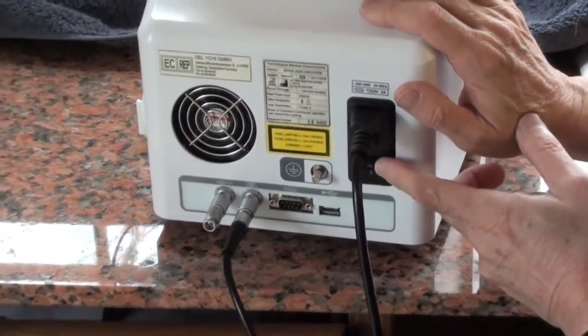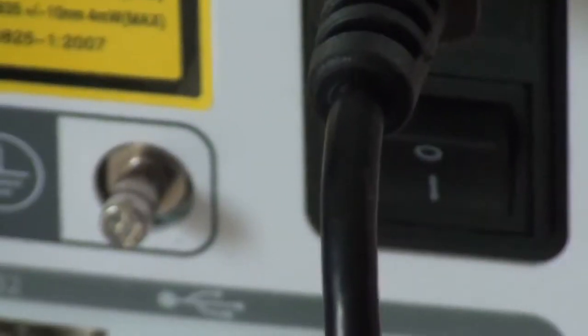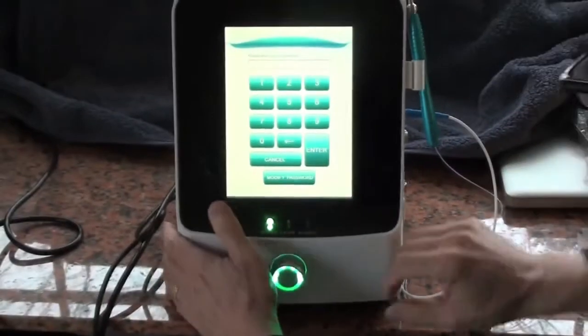That's how you turn it on, one and zero, that turns it on. In fact, when you turn this around, you'll see the screen coming up. So in the one position it comes on.